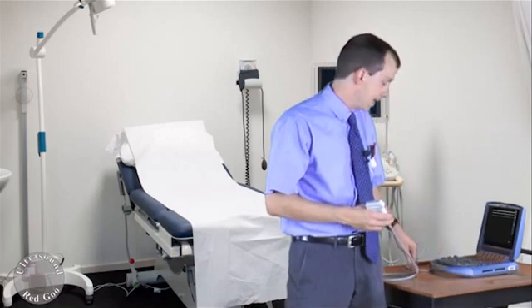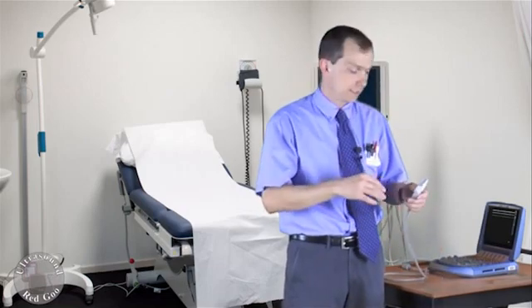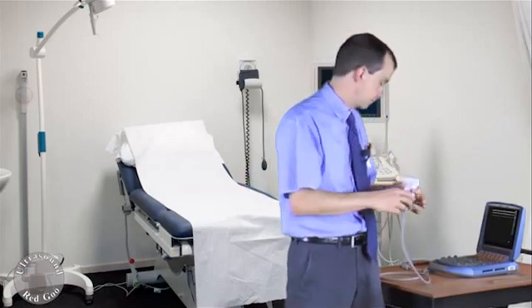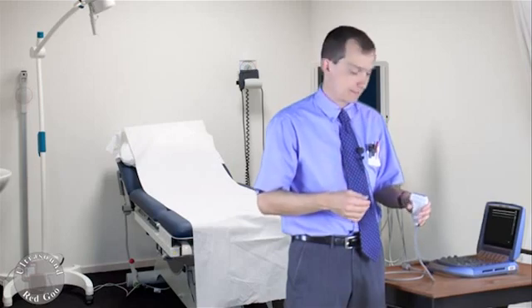This test in no way is going to replace a full acoustic spectrometry test of the probe. That's typically done by either a biomedical technician or a biomedical physicist in medicine.